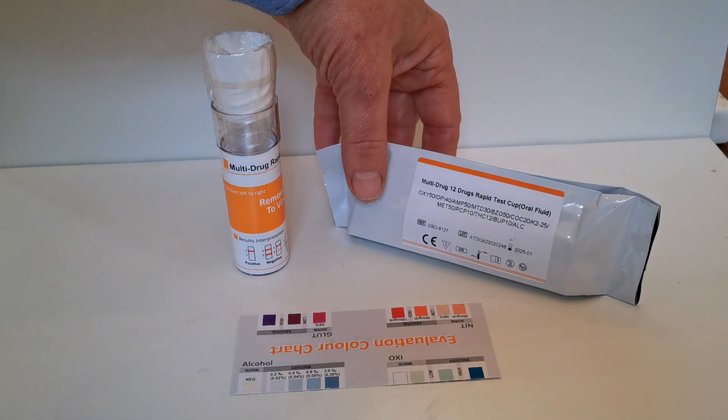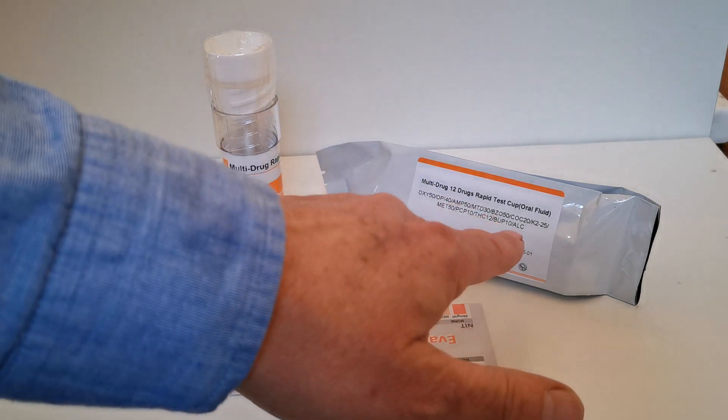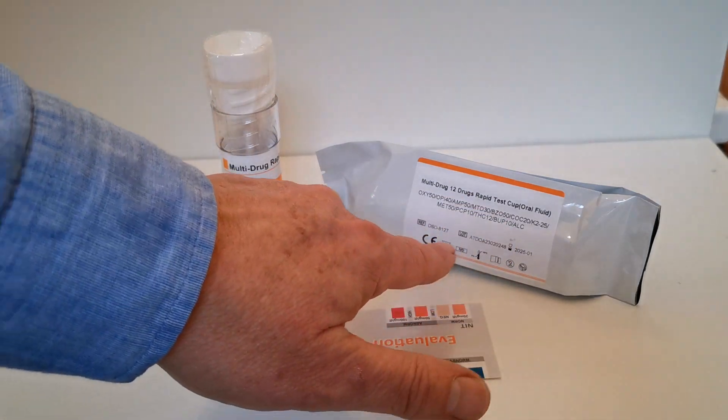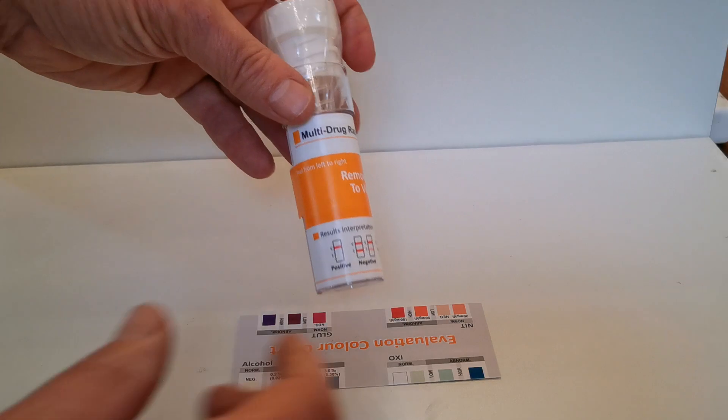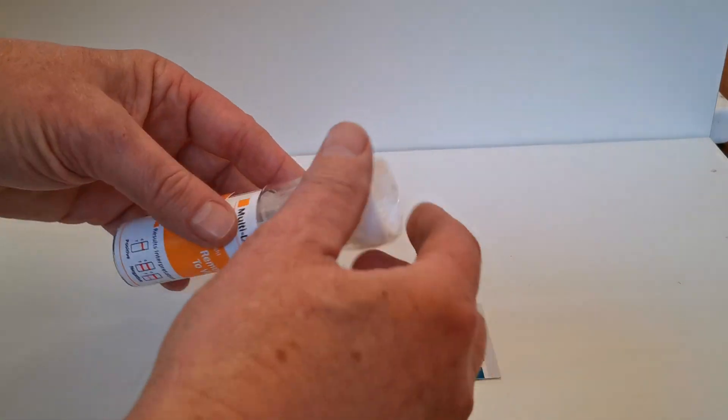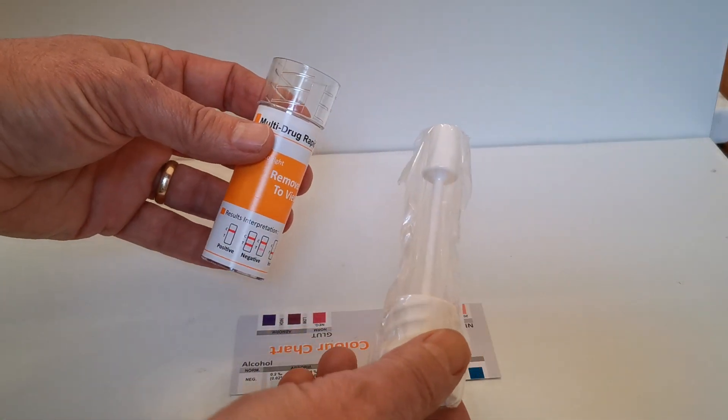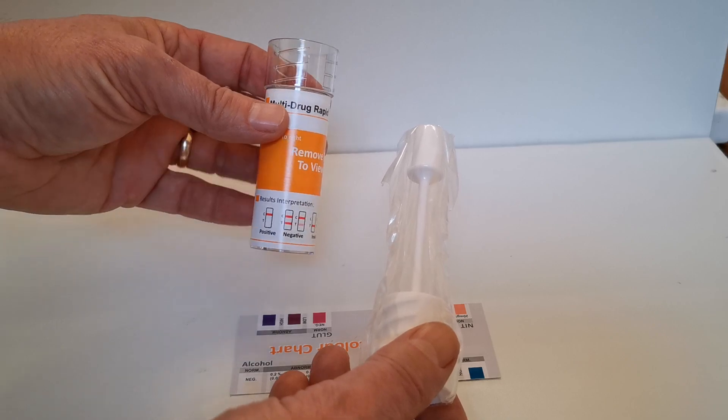Out of packaging, standard combinations written on the front, CE marking all along the base with the expiry and batch numbers. Inside one of these foils you'll find one of these saliva barrels. Inside it is the saliva collection swab on a stick.